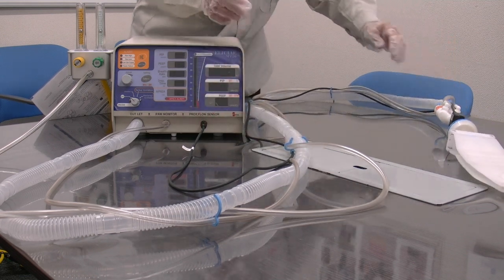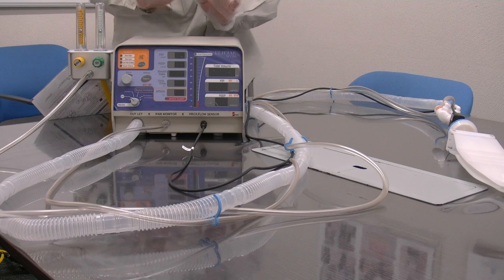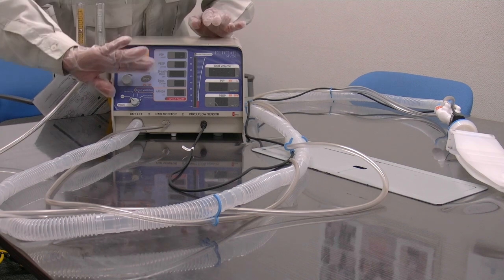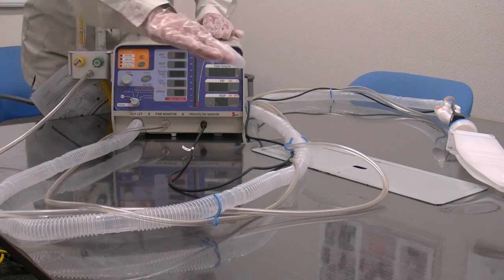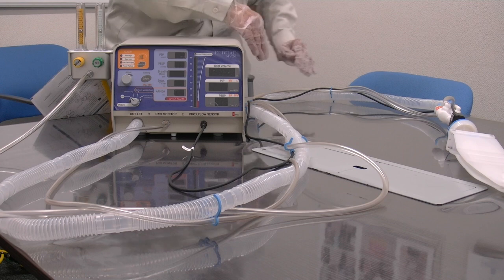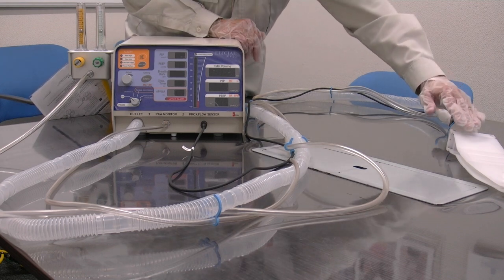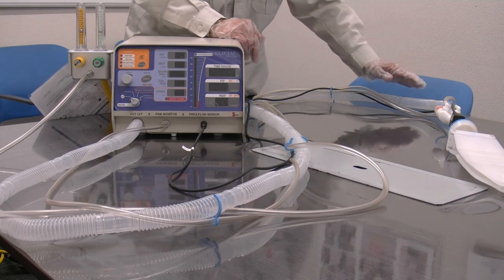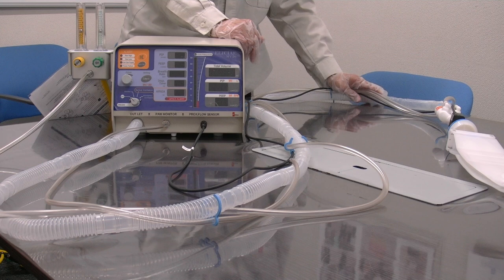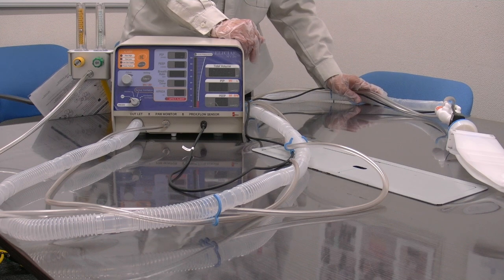In the inhalation phase, the main unit launches a jet of pressure into the patient breathing tube from this outlet, pushing the volume of blended air into the patient's airways and opening their lungs.